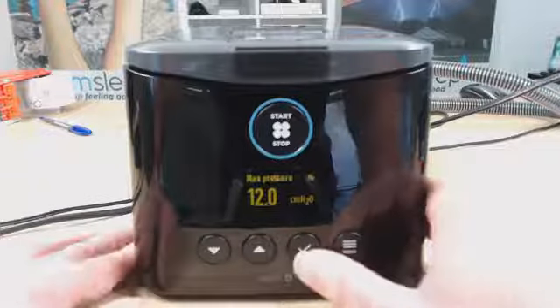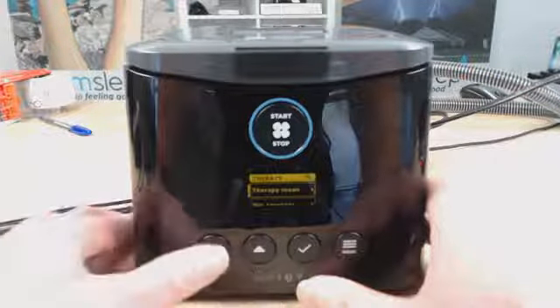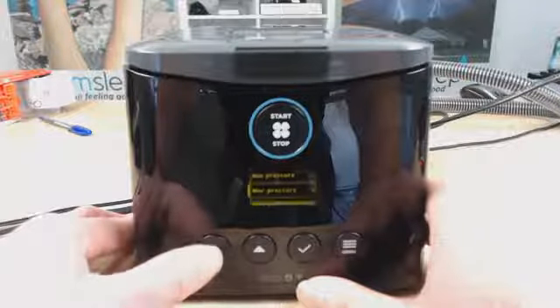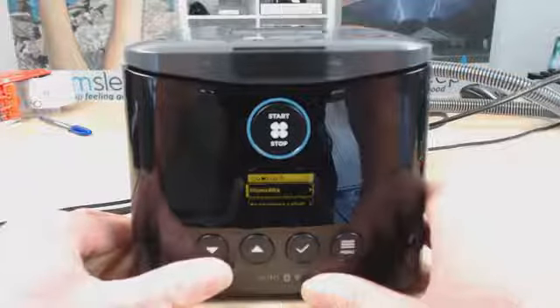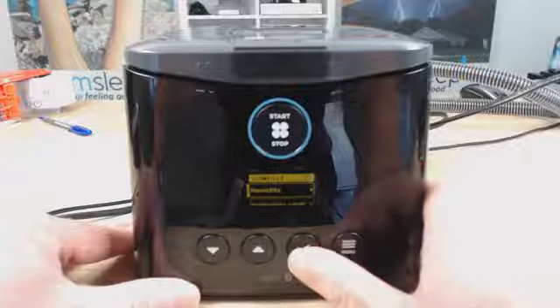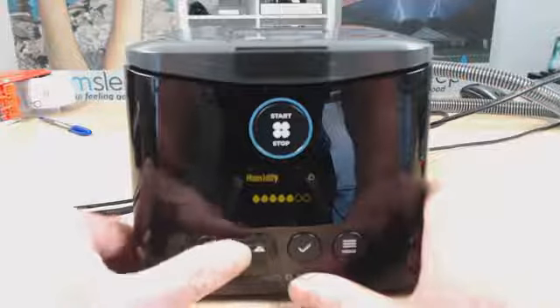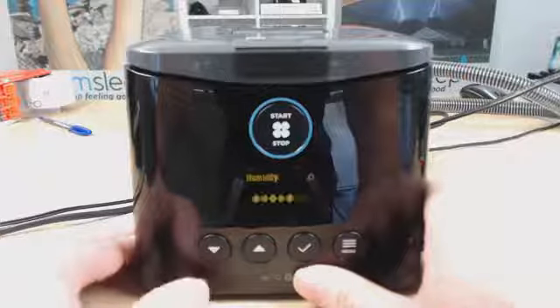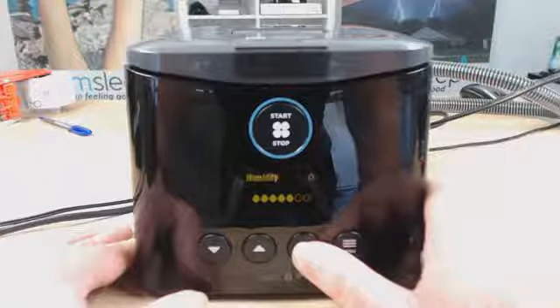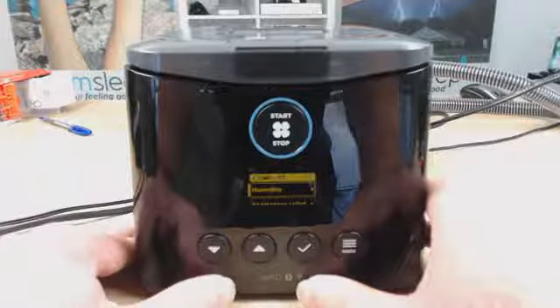All right, so I'm going to set this at 12. Now we can go down again. The next one, min pressure, max pressure we've just done. Now we get down to the comfort settings. So humidity, we can change the humidity level. Once again, we tick to go into it, and then we can up or down the humidity if we like. The more we go up, the more moisture there's going to be in the air. All right, so we're going to choose a level of 5 there. Press the tick to enter that setting.